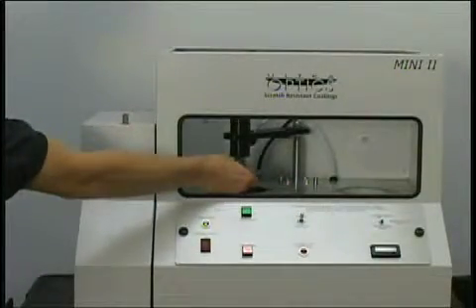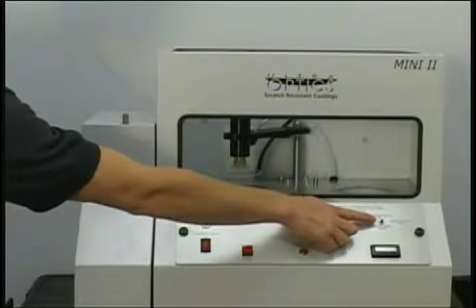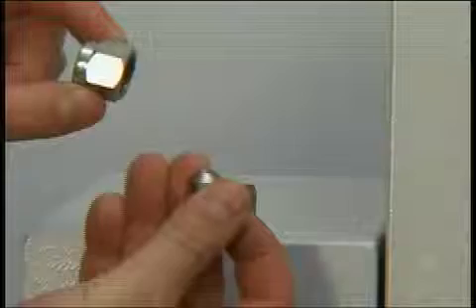Chuck up a lens and push the cycle start button. Pressure from the pump should dislodge anything that is jammed in the tip.